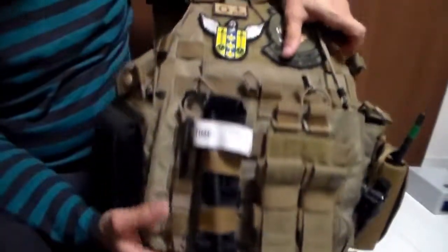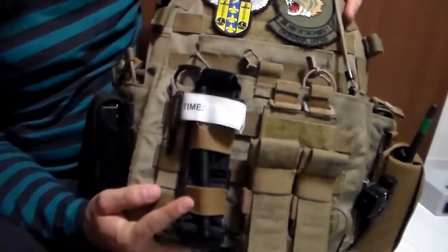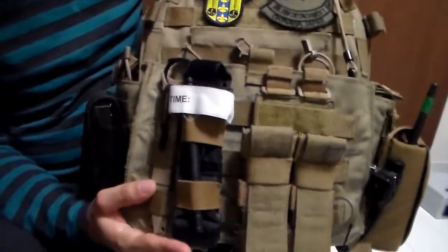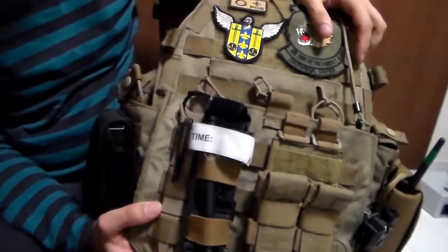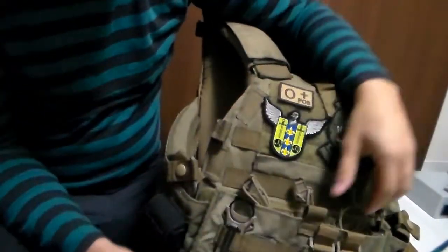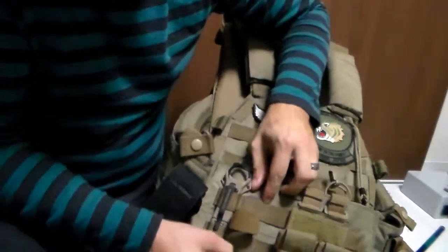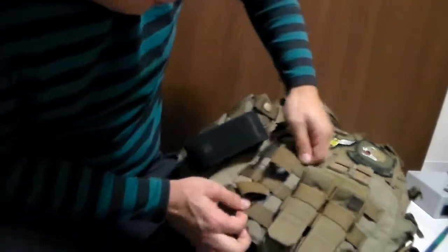Readily accessible — it's pretty nice. It's open, so there's nothing to move out of the way. It's relatively inexpensive to get ahold of, and it gives you two little bands to connect your tourniquet. When you need it, you go — oh no, my leg — and it's there, in your hand, ready to go. It's a good option to have. Very small, out of the way. Probably the most minimalistic I can think of.